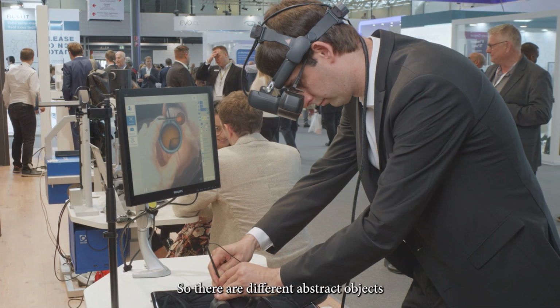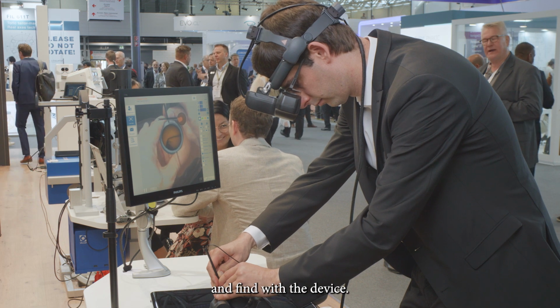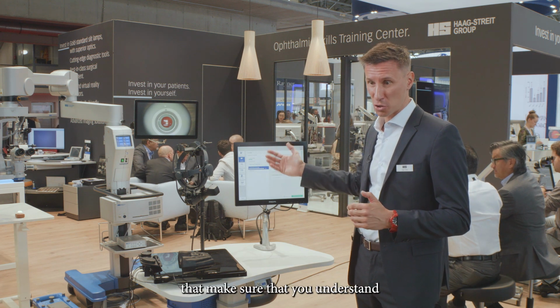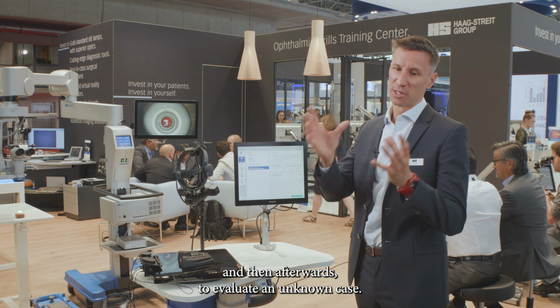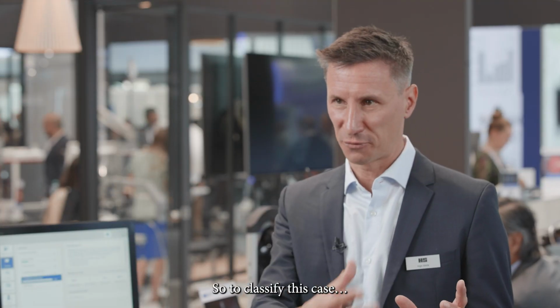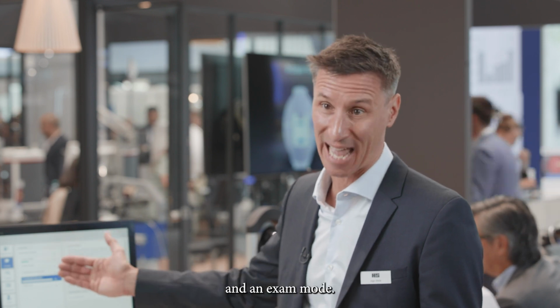There are different abstract objects on the retina that a trainee has to search and find with the device. There are 2 tiers within the curriculum that make sure that you understand how a certain stage of ROP looks like, and then afterwards to evaluate an unknown case, so to classify this case. So we're talking here about the learning mode of classifications and an exam mode.